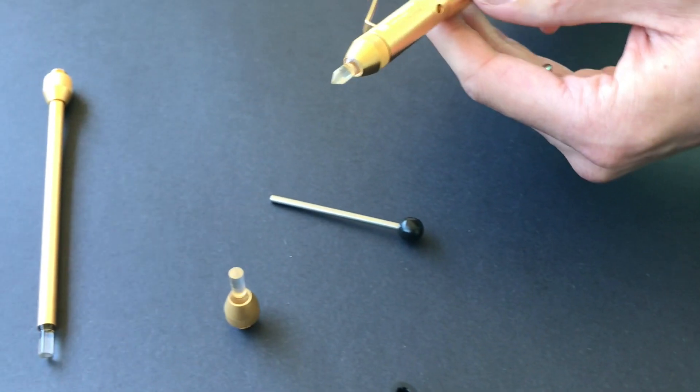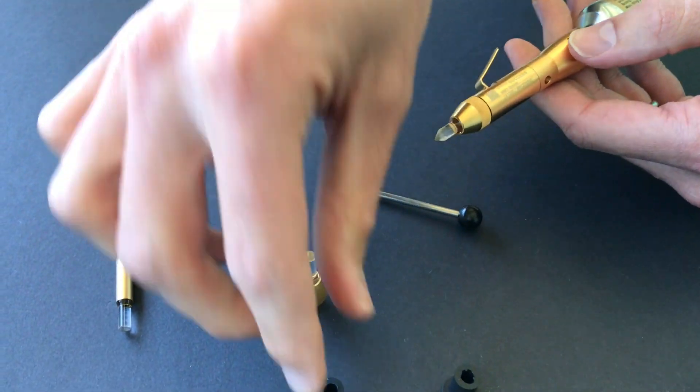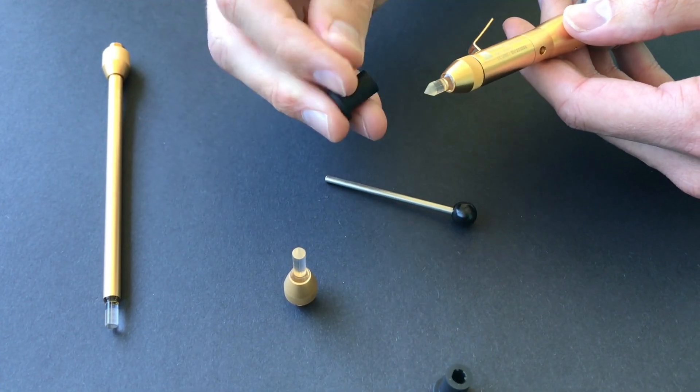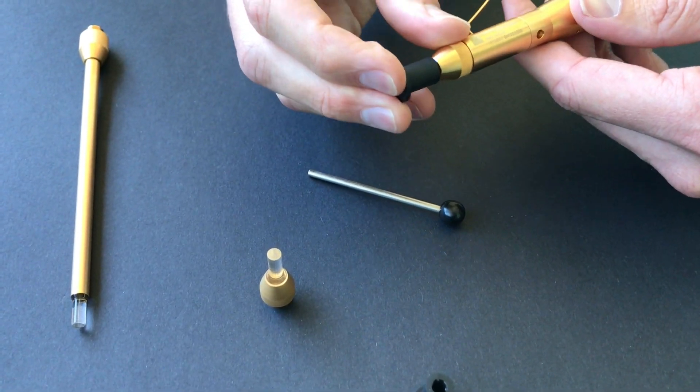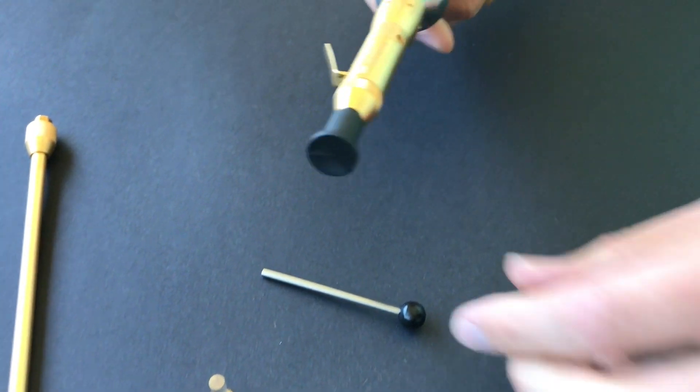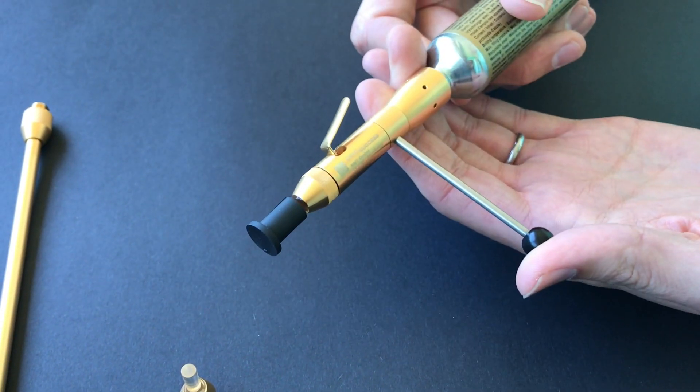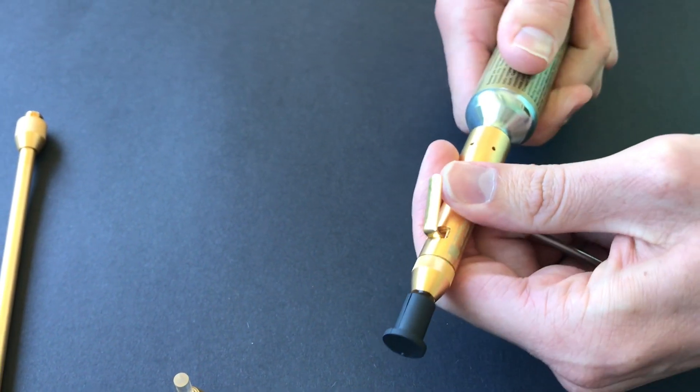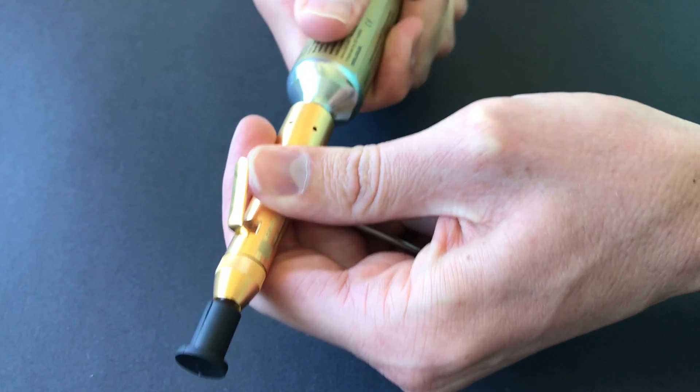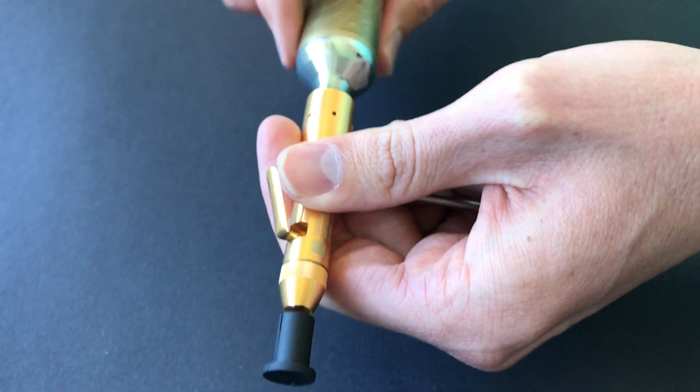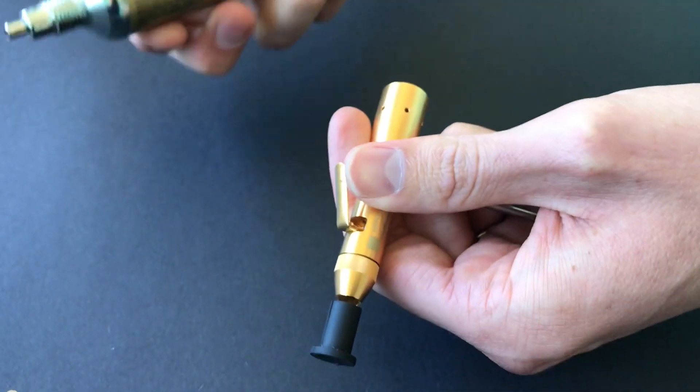After use, I recommend applying the plastic stopper just to protect the end of the cryo success needle. In removing the cylinder, place the metal pin back in, and with quick firm release, the cylinder releases and is ready for use at another stage.